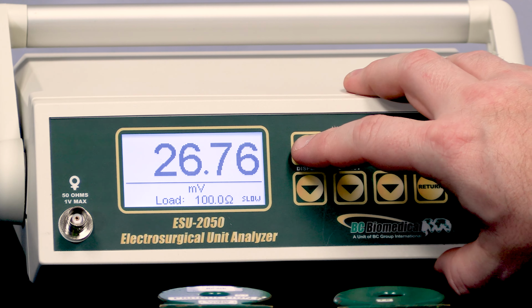Also, it's good to know that each one of these regions can be configured for a different measurement. You don't have to stay with what is there by default. You can change any one of these to display any of the readings that are available on the unit. And it's also unique by screen. So if I change the screen with 3 parameters on it, it doesn't affect the screen with 1 parameter.